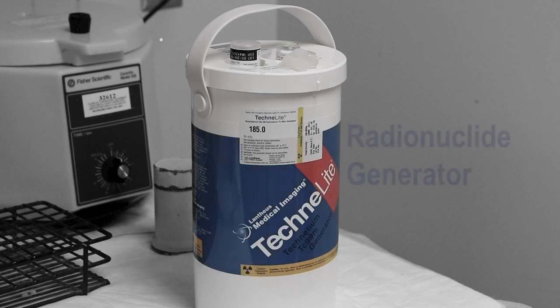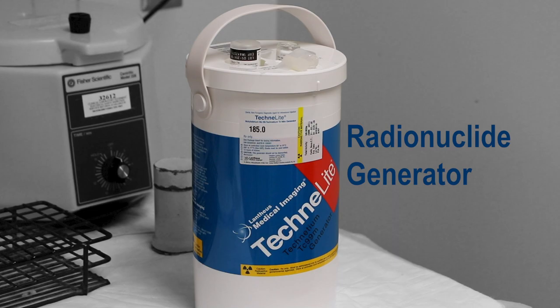Short-lived radionuclides are needed for patient care but decay very quickly, making their transportation difficult.